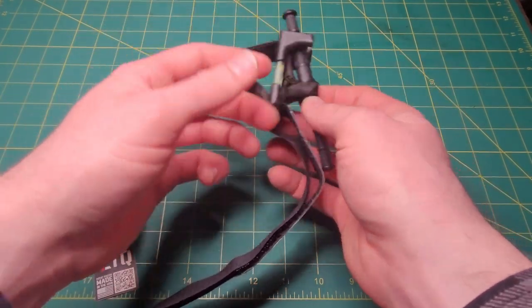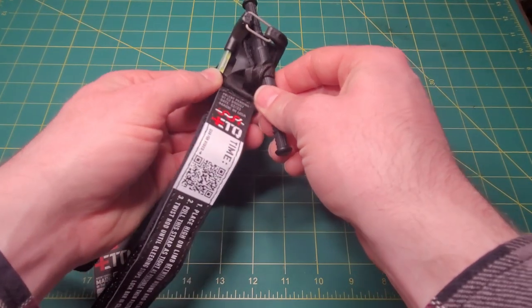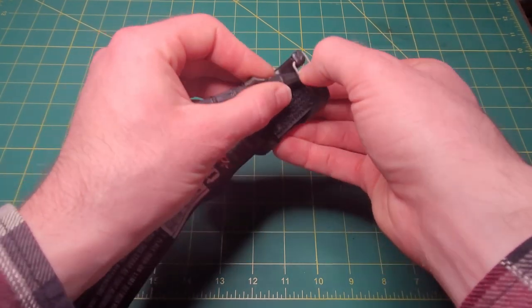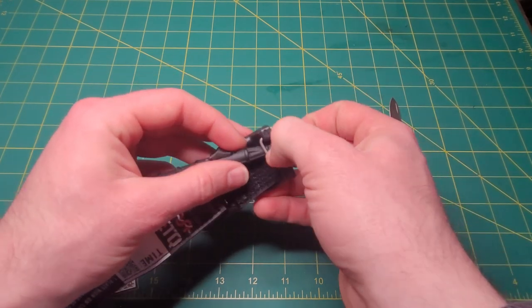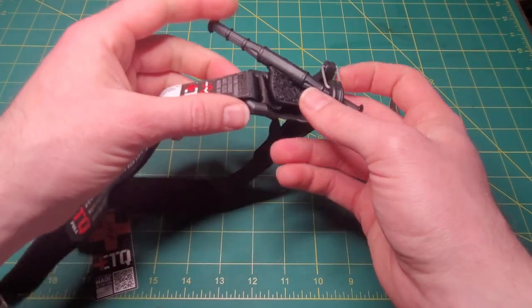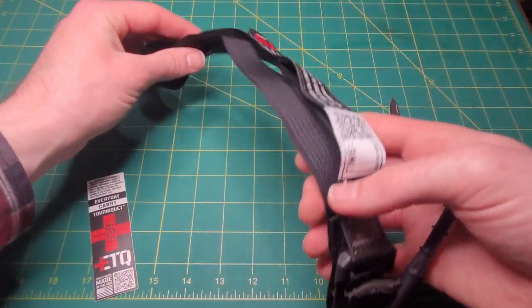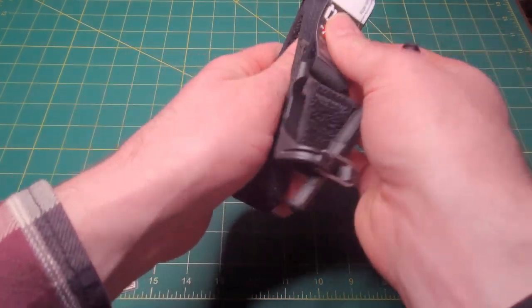I'm worried the glow stick piece is somewhere something could snag on, and if this piece breaks I'm not sure about that. This portion here also seems just kind of small to get the windlass in — it seems pretty tight to slap it in there and get it seated. I'm going to play around with this and test it out, but first let me just fold it up real quick and compare it to some other tourniquets I currently have.